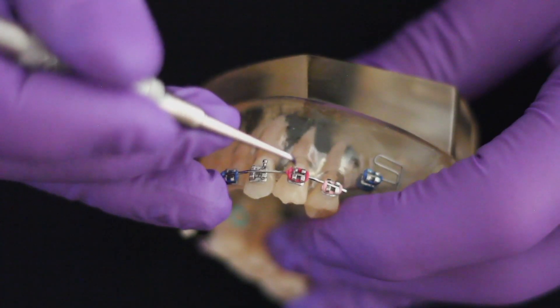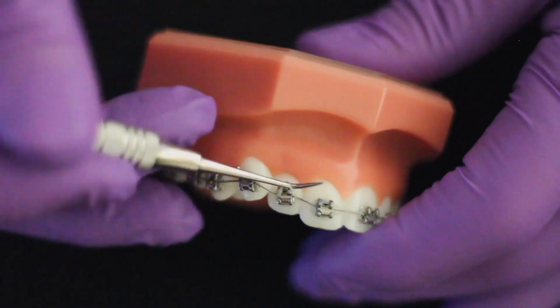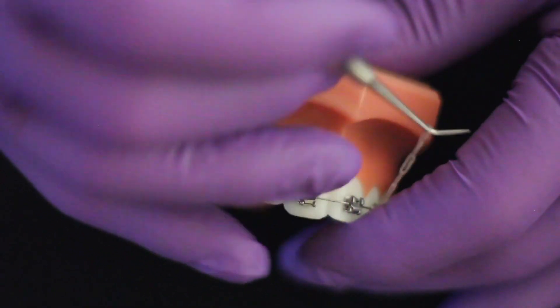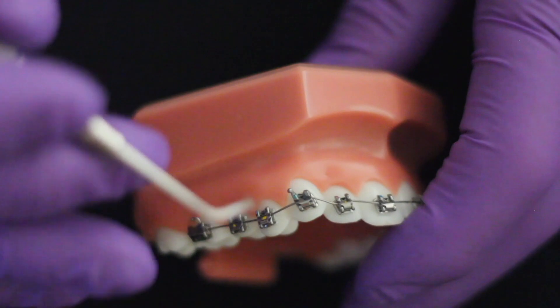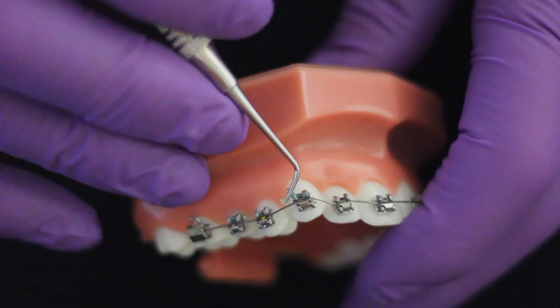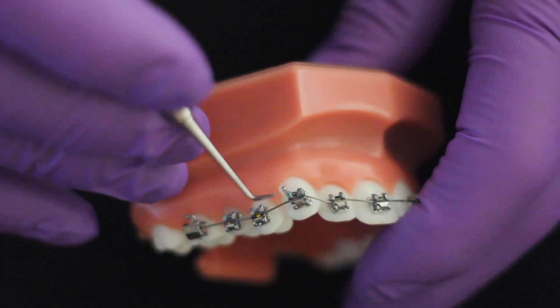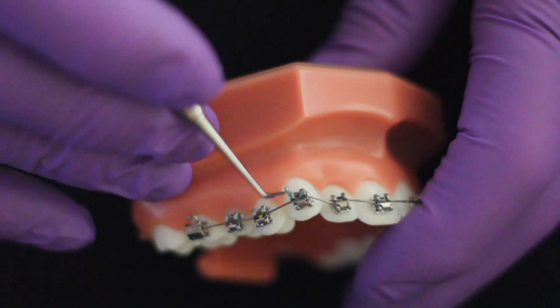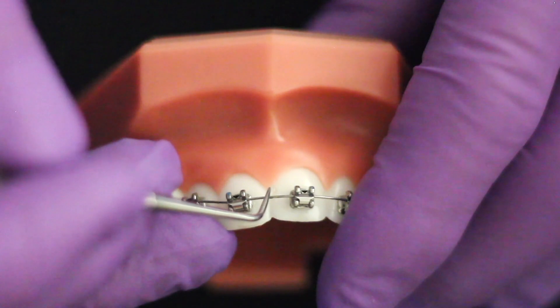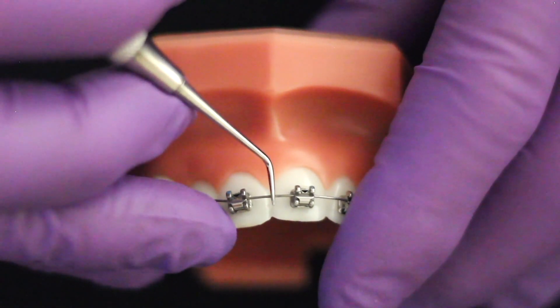The design of the probe makes it very easy to remove elastic ligatures and power chain from around the brackets. The stiff probe end is also very useful in transferring composite to various structures on the fixed appliance — for example, protecting the soft tissues against stud irritation by building up the composite around the stud, and stopping arch wires moving sideways by placing some composite in the midline.